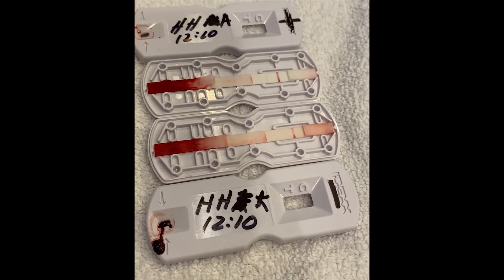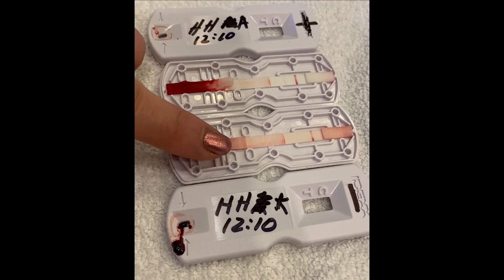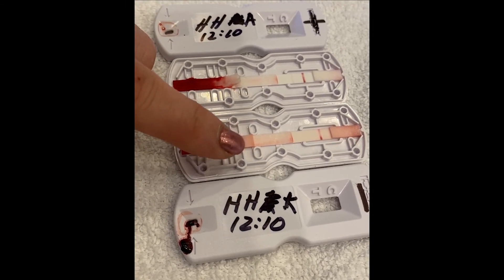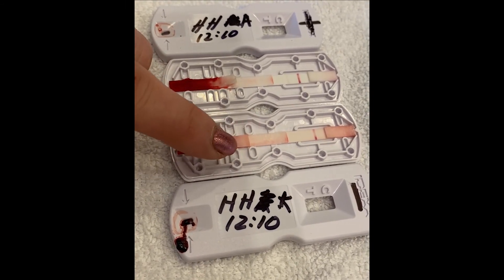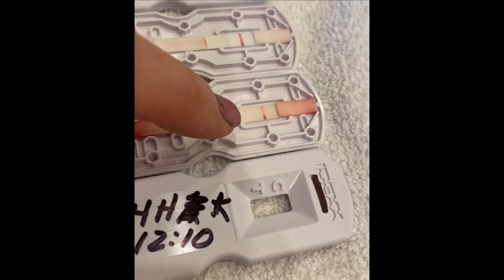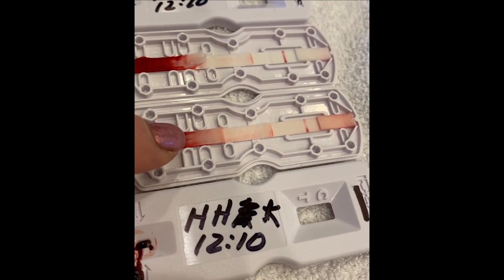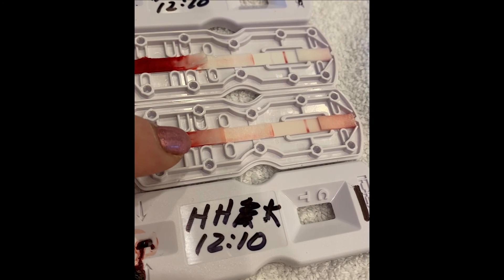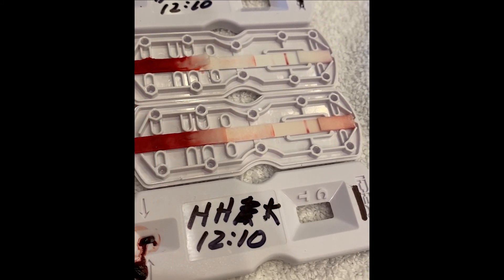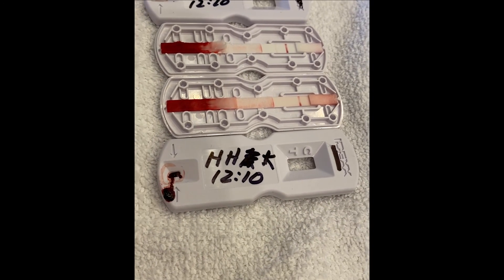That is what they look like — positive, negative. We're actually going to recheck this one. Her in-lab test was a recheck, but you can see there is not a faint line here because she is not far along — she's probably about five days early. Probably in another week this one will actually be positive. You can do it at home.